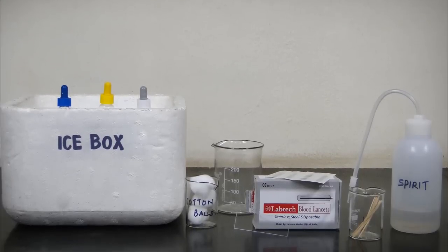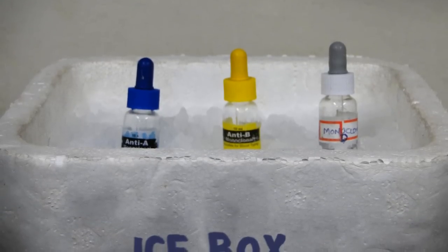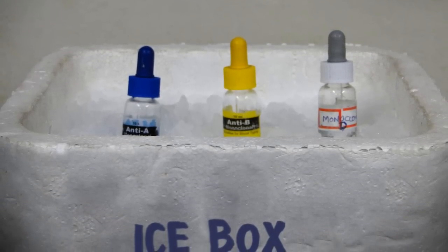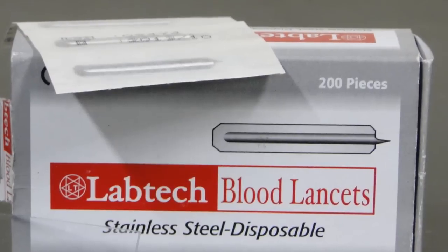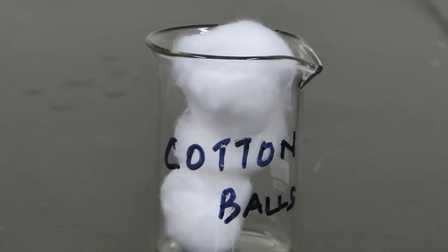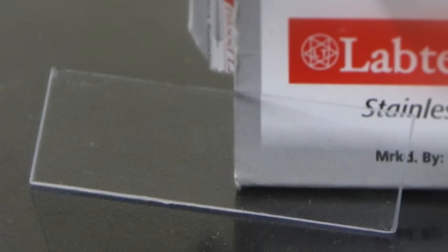To conduct the experiment, we require 3 monoclonal antibodies — anti-A, anti-B, and monoclonal D — kept in an ice box, along with lancets, spirit, cotton balls, toothpick, and glass slide.